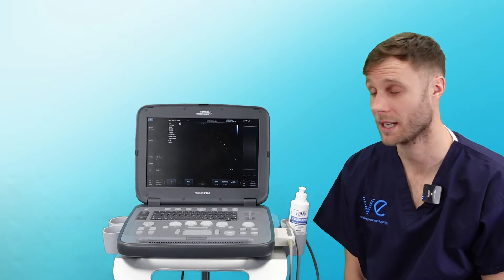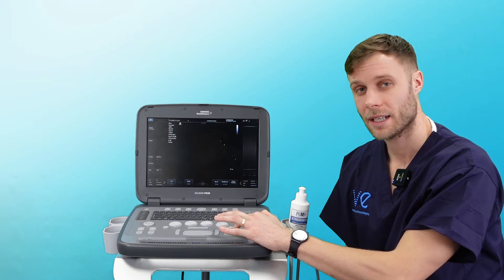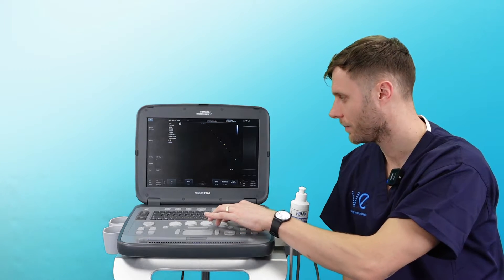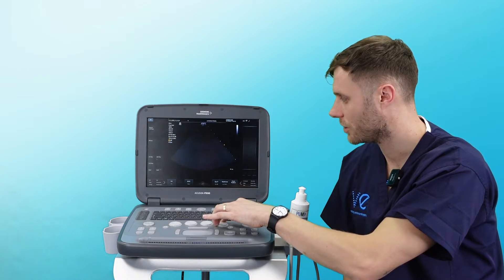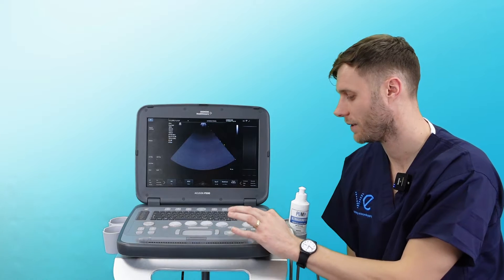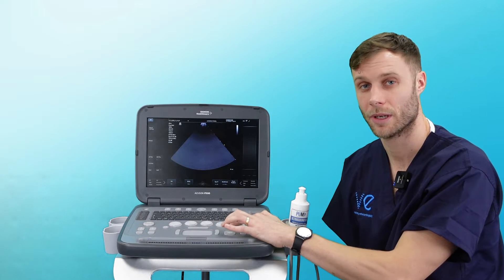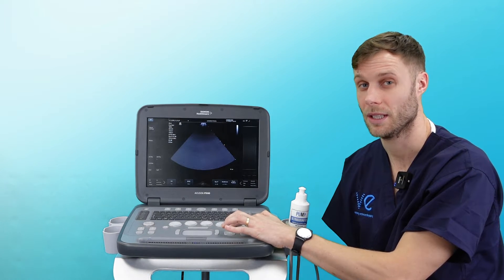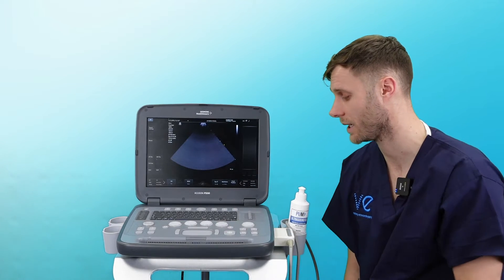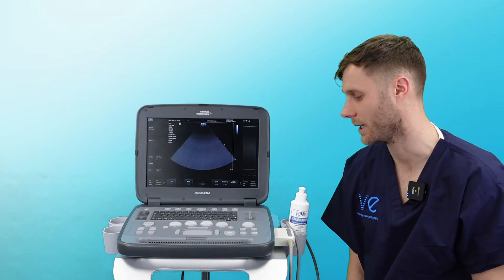Now you're ready to scan. Starting on the right hand side, we have our 2D button — you can twist that to increase the overall gain. Alternatively, you have the two lines next to it, which is an auto-optimize button that will auto-optimize the image for you. Press that and it will auto-optimize the gains.